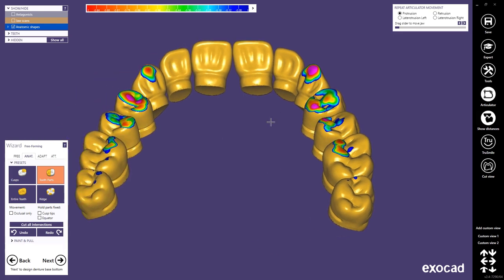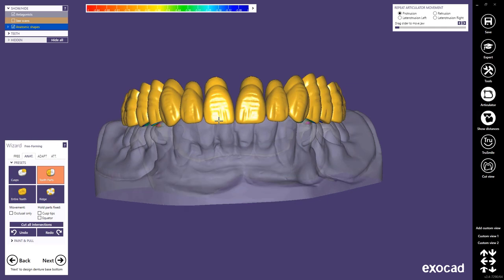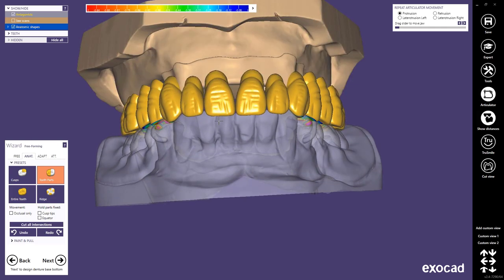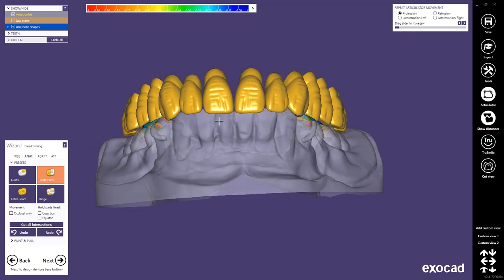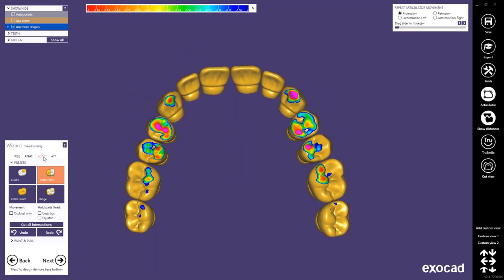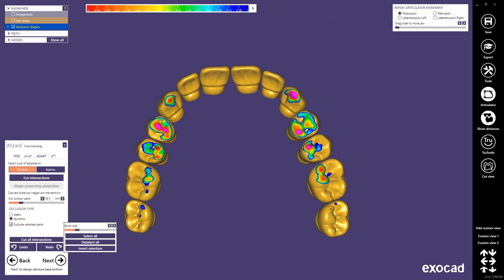Please keep in mind that this means I have to print or mill those teeth in the end. Since I selected printed teeth this is no problem, but if I would want to use stock teeth it wouldn't make sense to change the shape or size of those teeth. My contact points can be adapted the same way as in every other crown or bridge. Since I use the virtual articulator I also get the dynamic movements. I personally prefer to select the parts option and mark the contact points on my anterior teeth so they preserve their original shape.